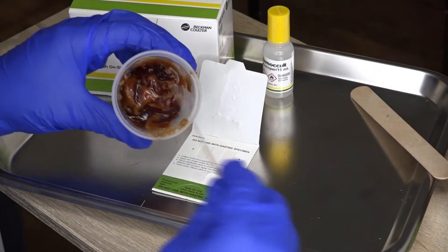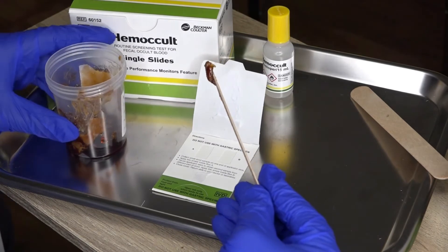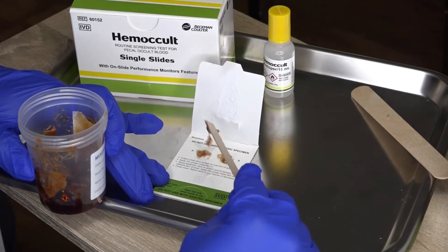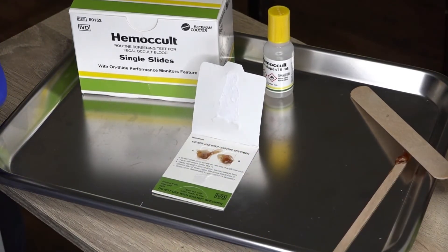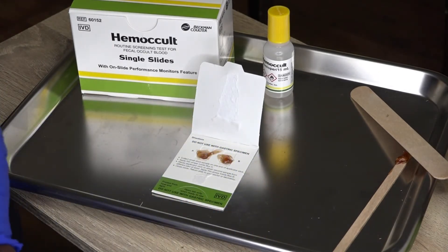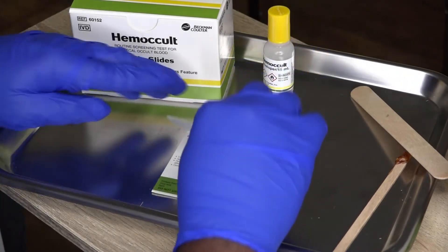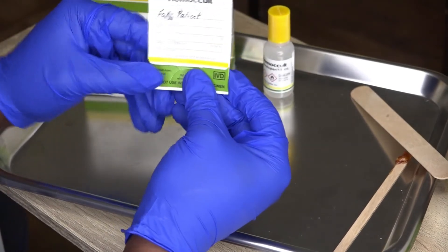As we're drawing it out, I want to mention that a lot of times when you're dealing with this type of stool, it's going to be either semi-solid or liquid, because there's a slight chance you'll be dealing with some gastrointestinal distress that your patient is going through. I put the feces on the windows — and there are instructions on how to do this on the card as well. After you put the fecal specimen in those two windows on the card, you're going to close it up, and there are little tabs that hold it closed.